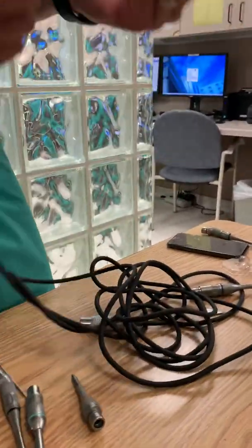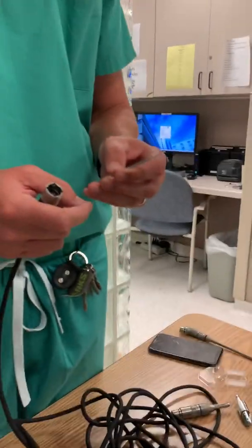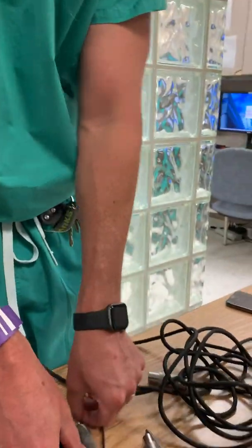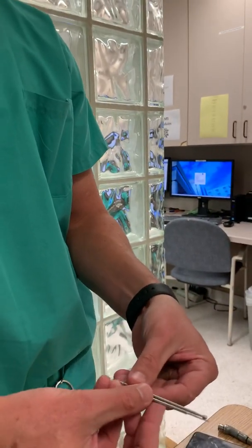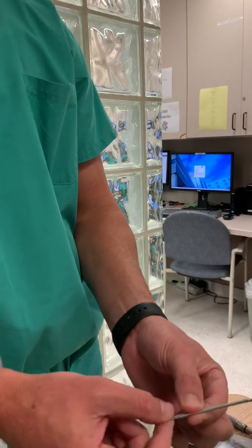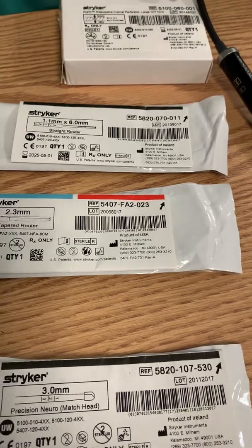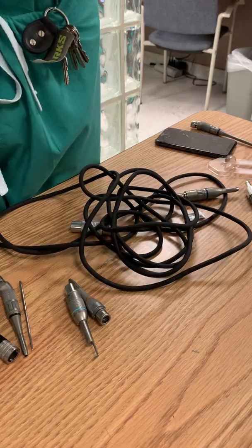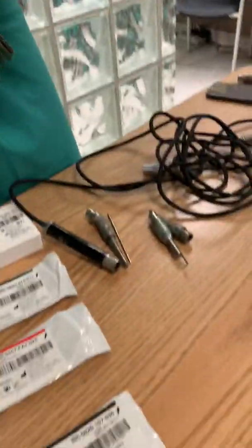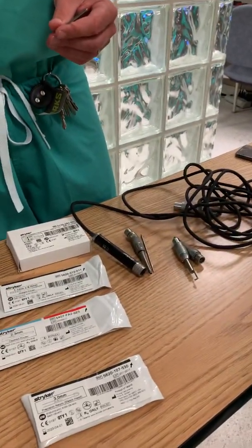Just remember: this back end has no rivets on it — it's fat — it goes right in here like that. So with this one, rivets right here and rivets right here — same thing. Rivets go in the black. It's color-coded. And this is what they use for the little tack-up holes, when they're tacking the dura.